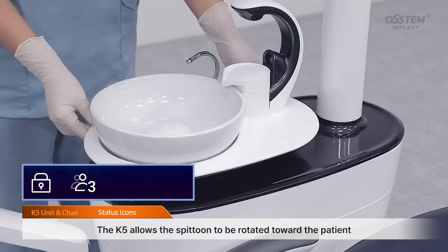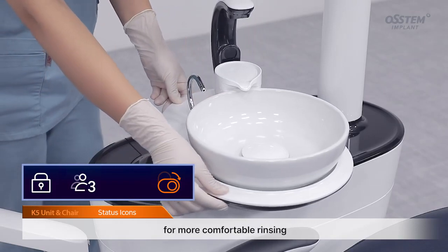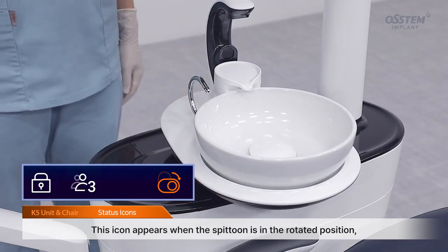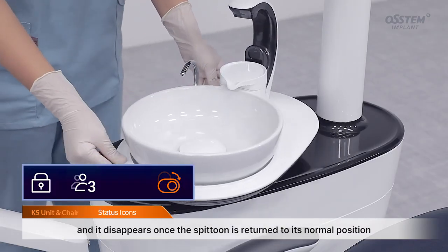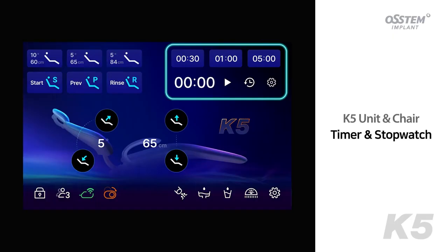The K5 allows the spittoon to be rotated toward the patient for more comfortable rinsing. This icon appears when the spittoon is in the rotated position, and it disappears once the spittoon is returned to its normal position. Timer and stopwatch.